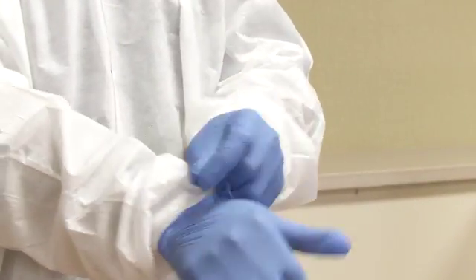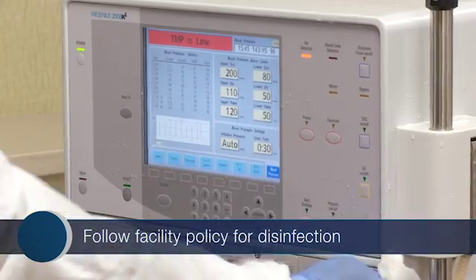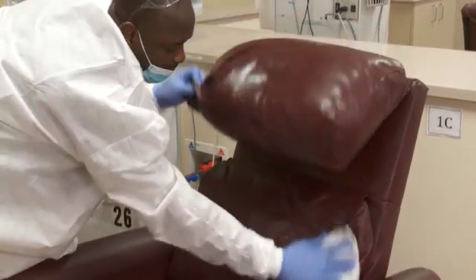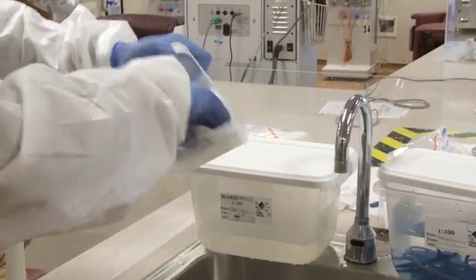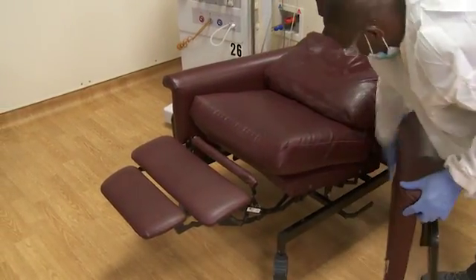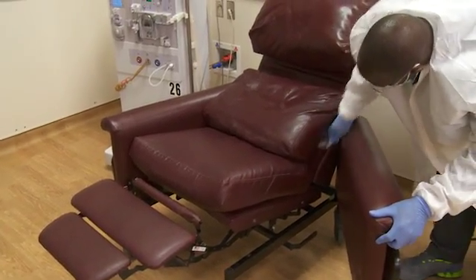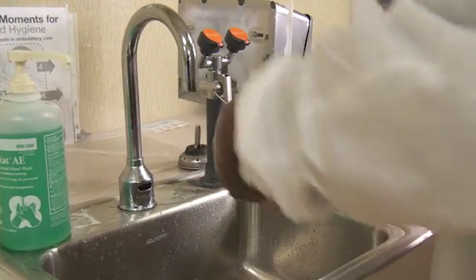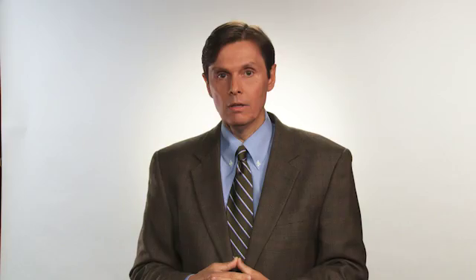Here are the steps for routine disinfection of the empty dialysis station when there is no visible soil or blood on surfaces. While wearing a gown, put on clean gloves. Apply disinfectant to all surfaces in the dialysis station using a firm wiping motion. Make sure that surfaces of the station are visibly wet with disinfectant. Also disinfect all surfaces of the emptied priming bucket. Let all surfaces air dry naturally. Avoid recontaminating surfaces by keeping any used or potentially contaminated items away from the disinfected surfaces. Finally, remove your gloves and perform hand hygiene. Do not bring the next patient or any supplies for the next treatment to the dialysis station until all of these steps have been completed. Following these steps for routine disinfection will help prevent the spread of infections.